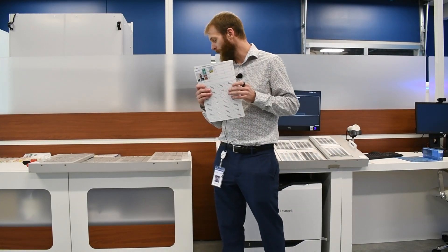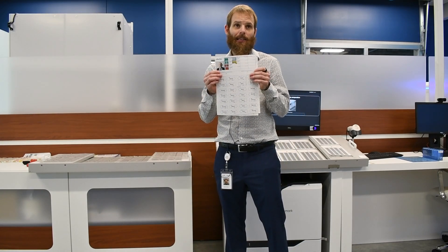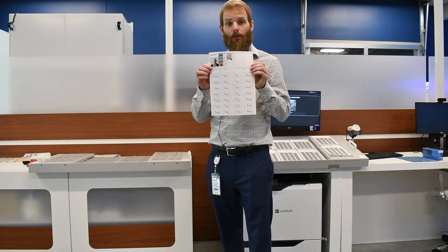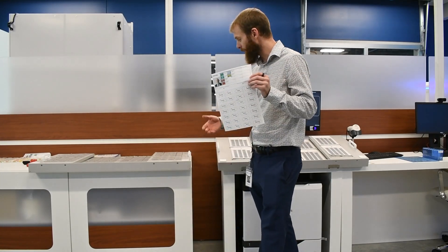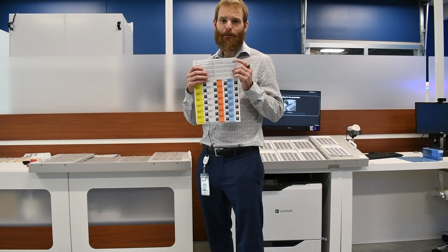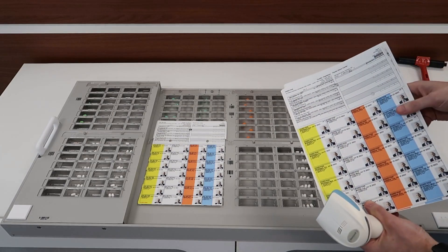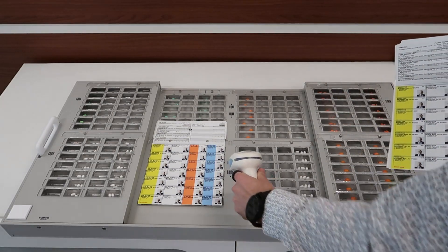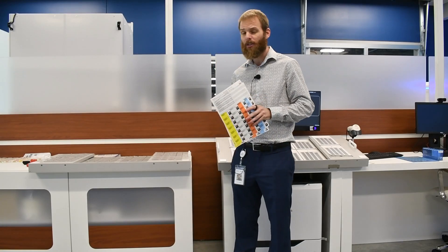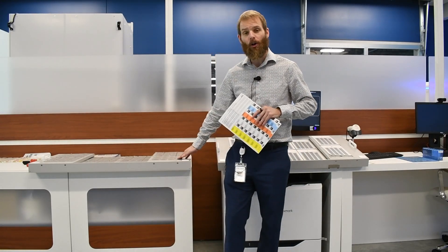These labels are customizable — your card manufacturer does dictate the customization options available, but they are customizable to a certain degree. Your staff will print all the labels for the tray, and each one of these labels is going to have a barcode on it. The staff will scan the barcode next to the card on the tray, then scan the actual label associated to that card, to verify they have the right label for the right card at the right time.